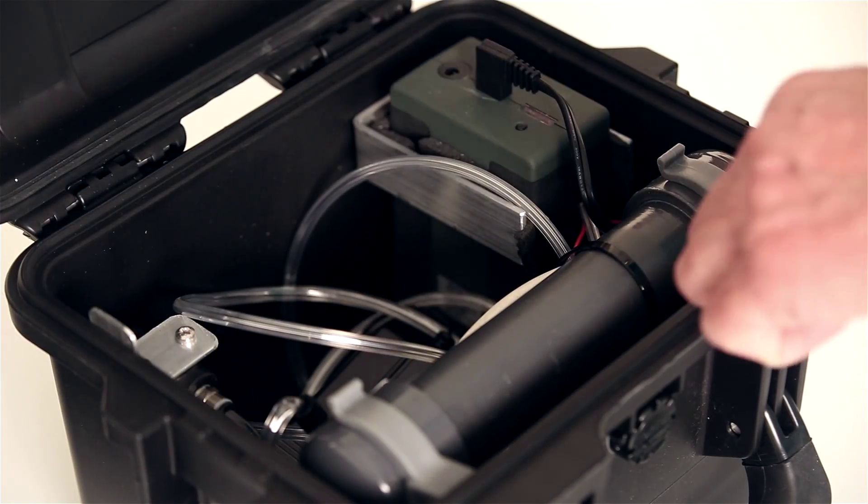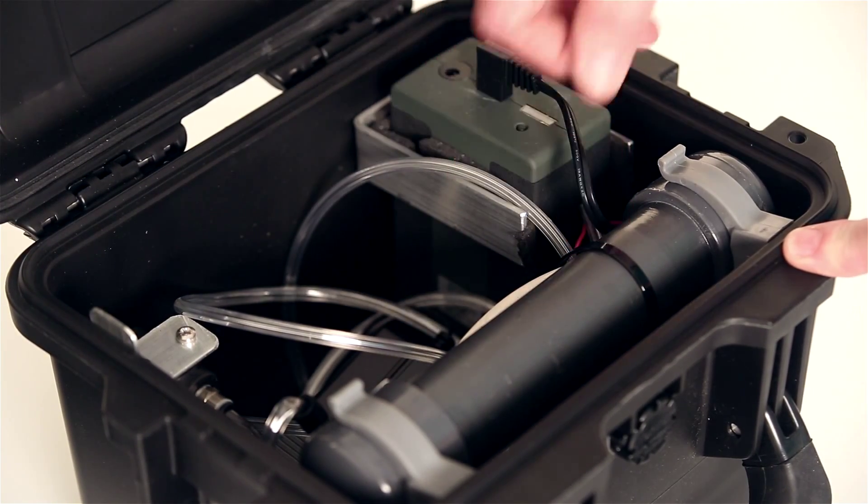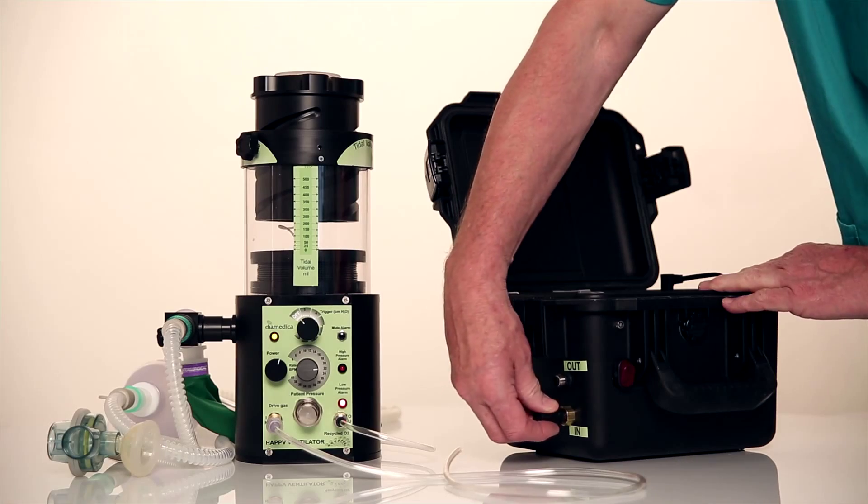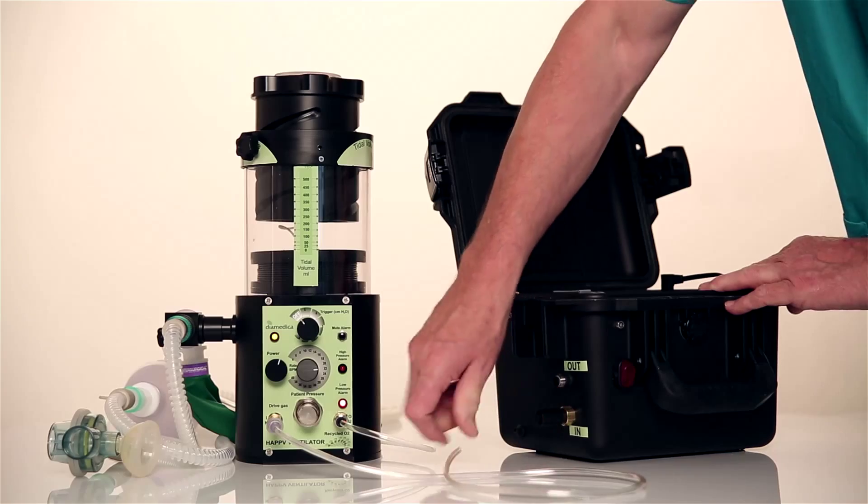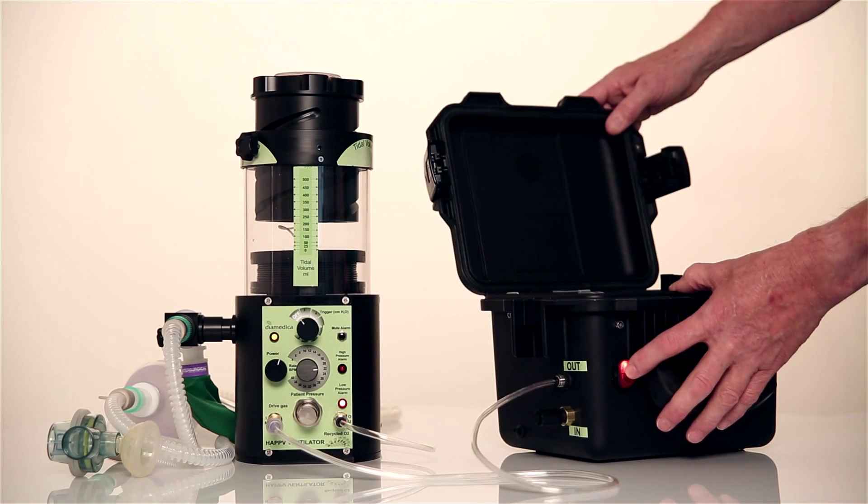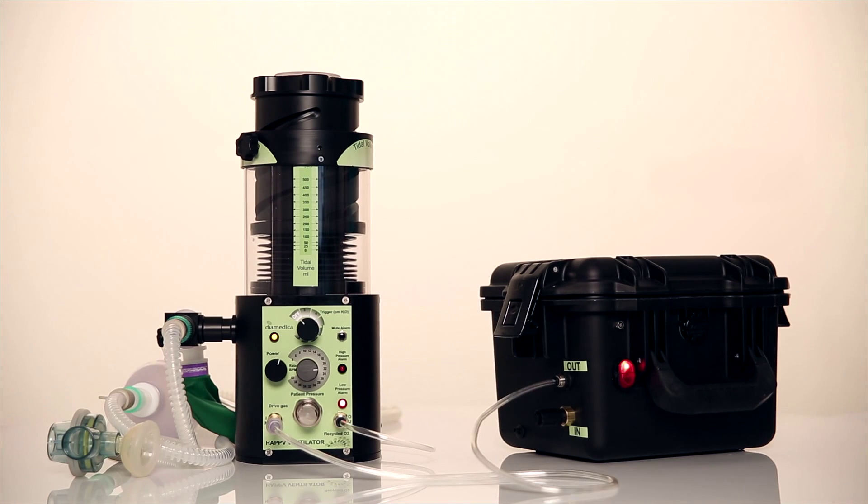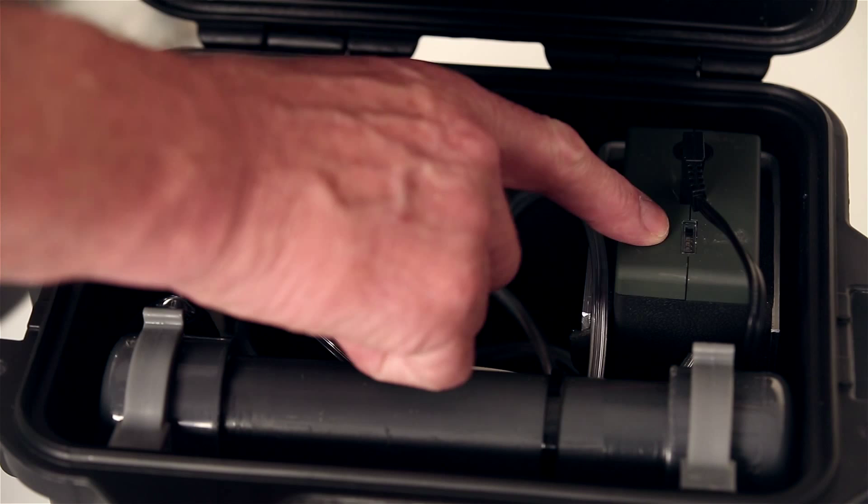The compressor pump contains a pump, small reservoir, lithium rechargeable battery and water trap. The inlet filter is first screwed into place and the drive gas tube connected between the pump and the ventilator. The pump is then switched on. The battery should run for 20 hours when fully charged. The level of charge is shown here.